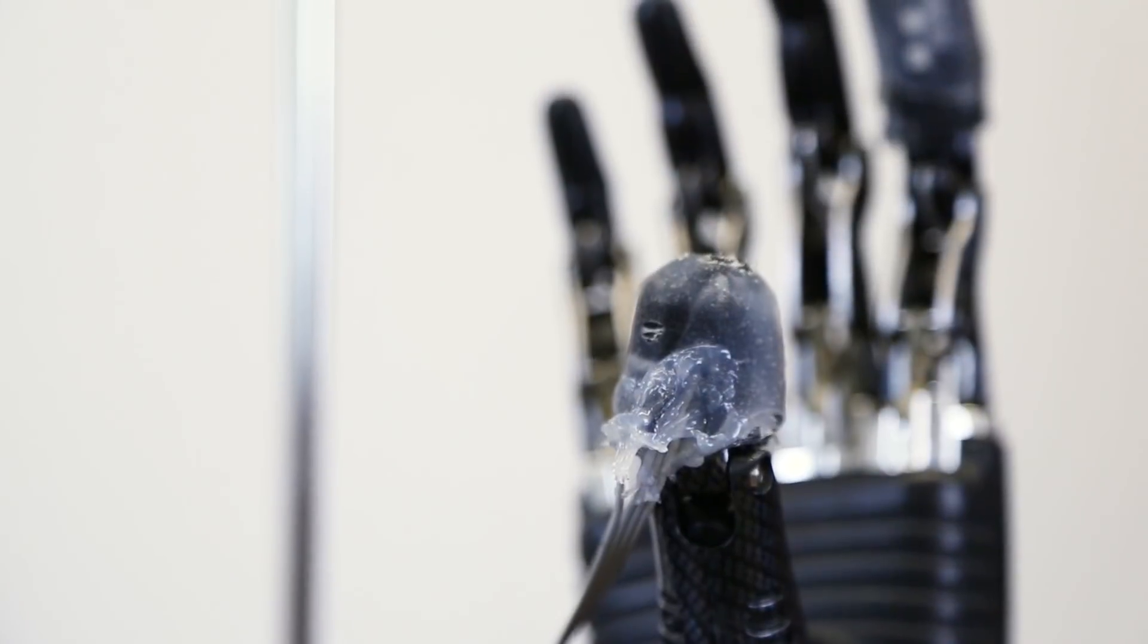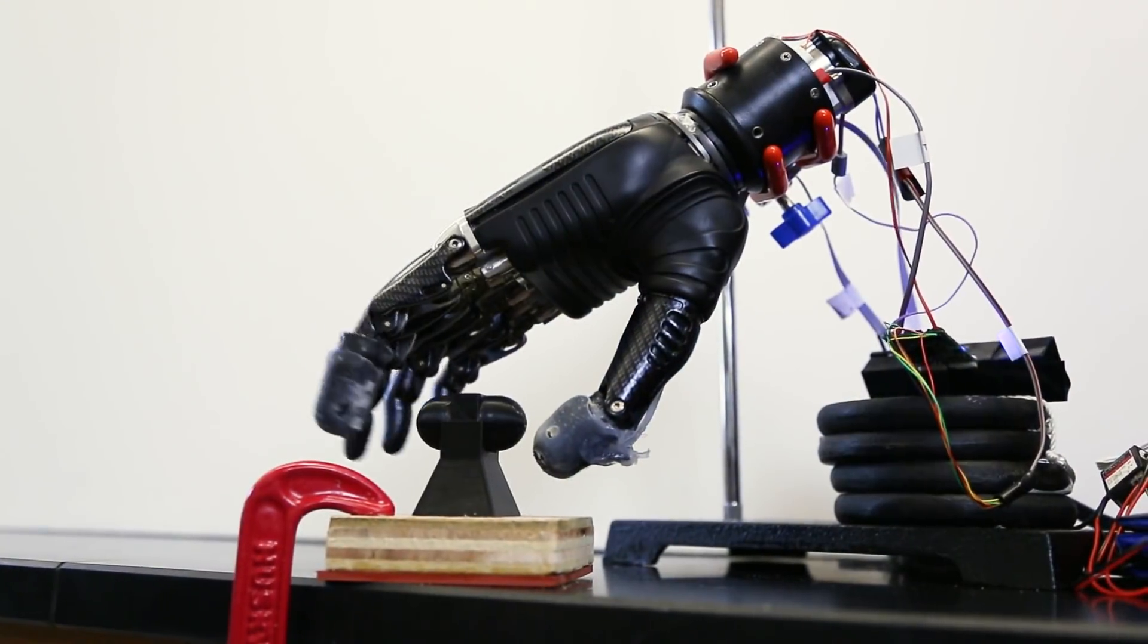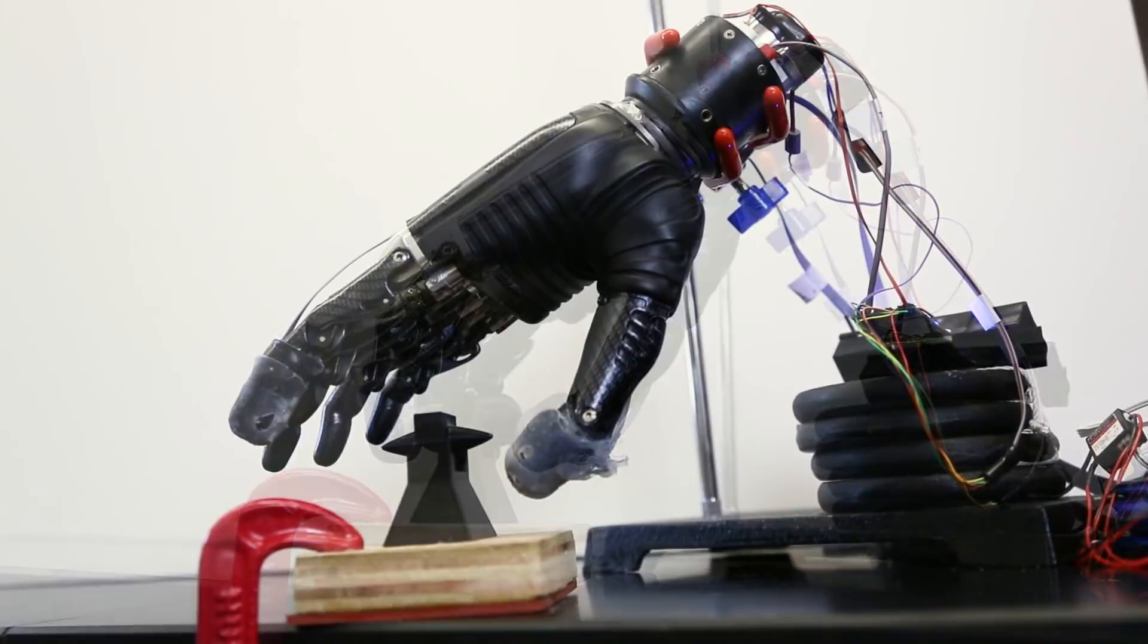These pain sensors that we've made go over the fingertips of the prosthesis, and they can detect both touch and pain.